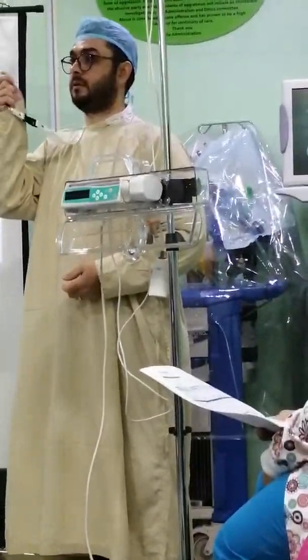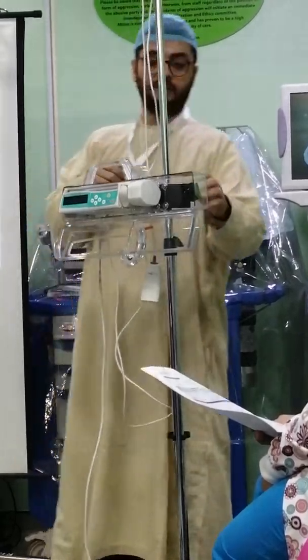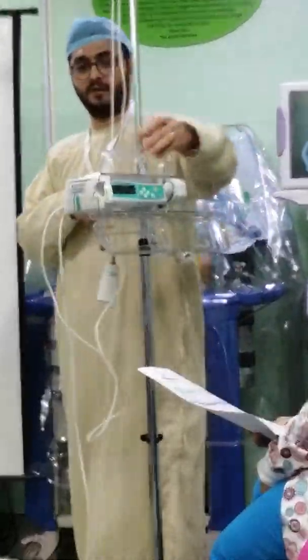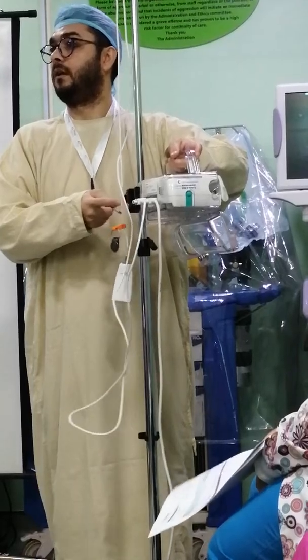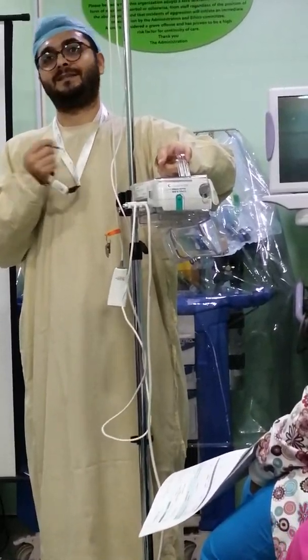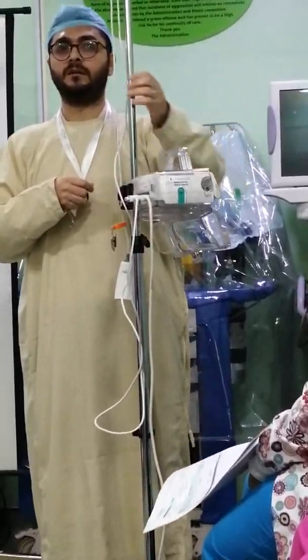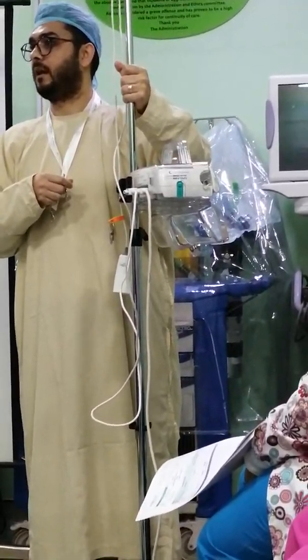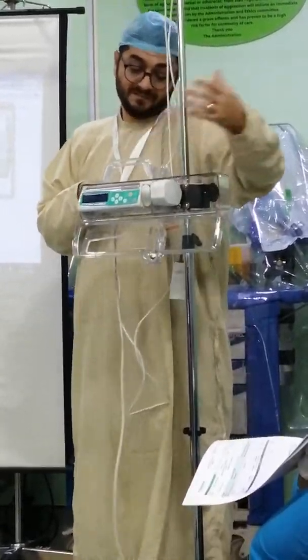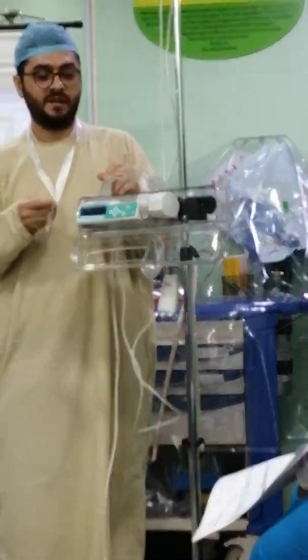This will be your key. So the box can be locked in two places. First, to the IV stand — you can lock the box to the IV stand. So if anybody had that crazy idea of taking the whole thing and running away, they would have to take the IV stand with them. Because it happens — there are recorded attempts like this.